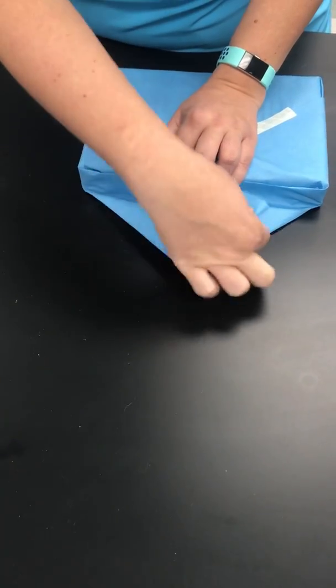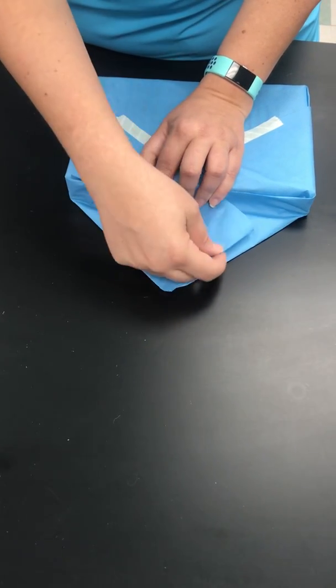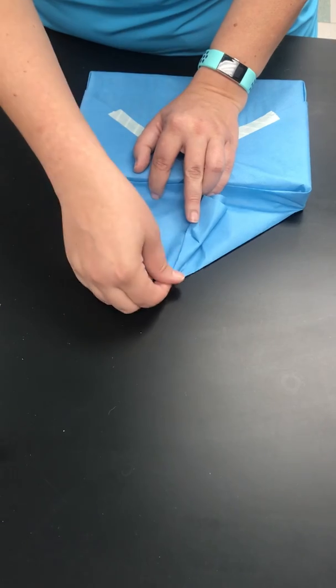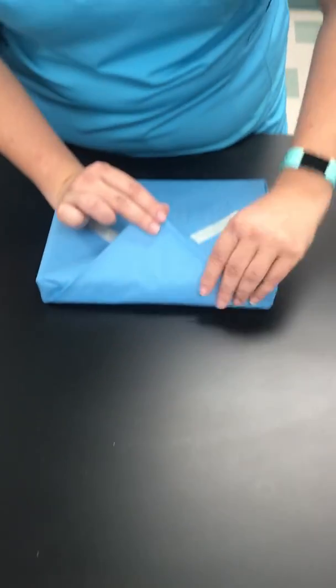Make your crease and make sure all parts are tucked in. If this flap is hanging out, you could just fold that in a little bit more, and then completely fold the whole top down.